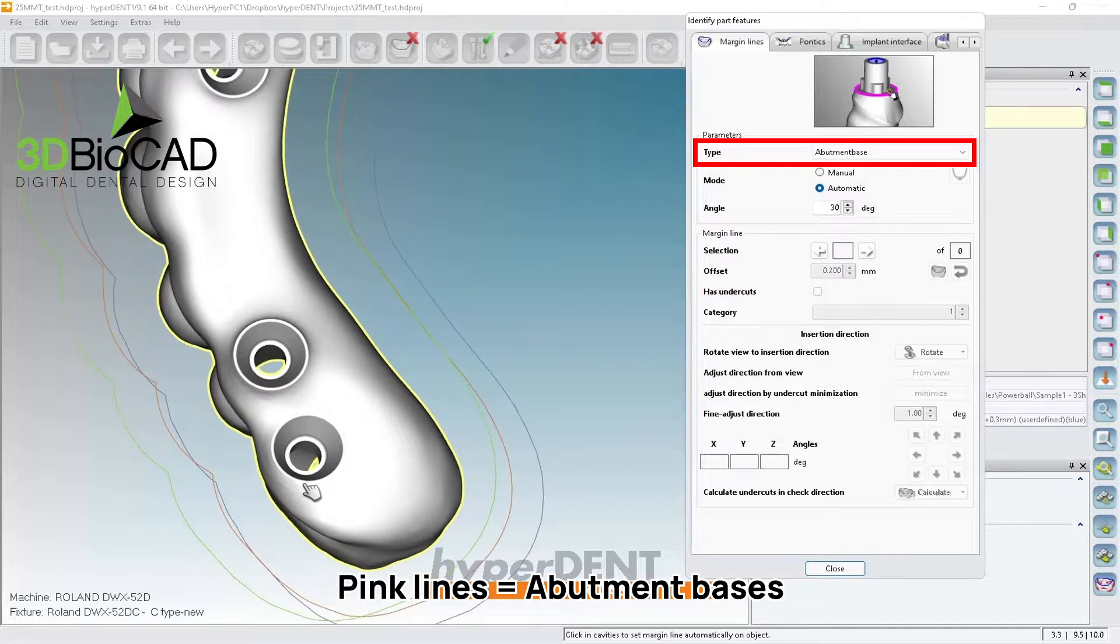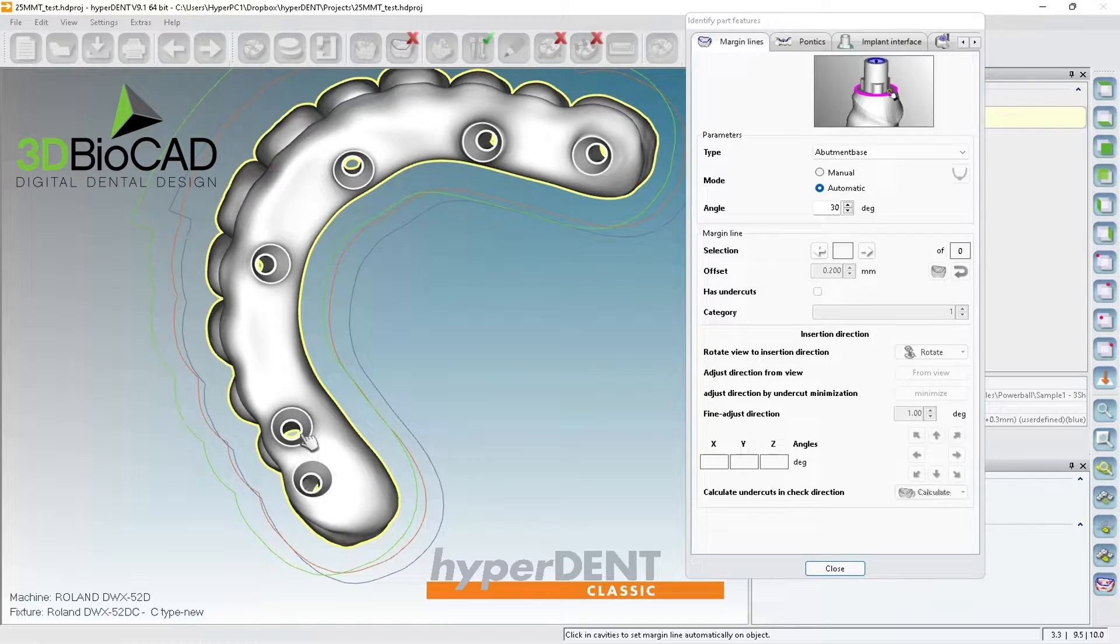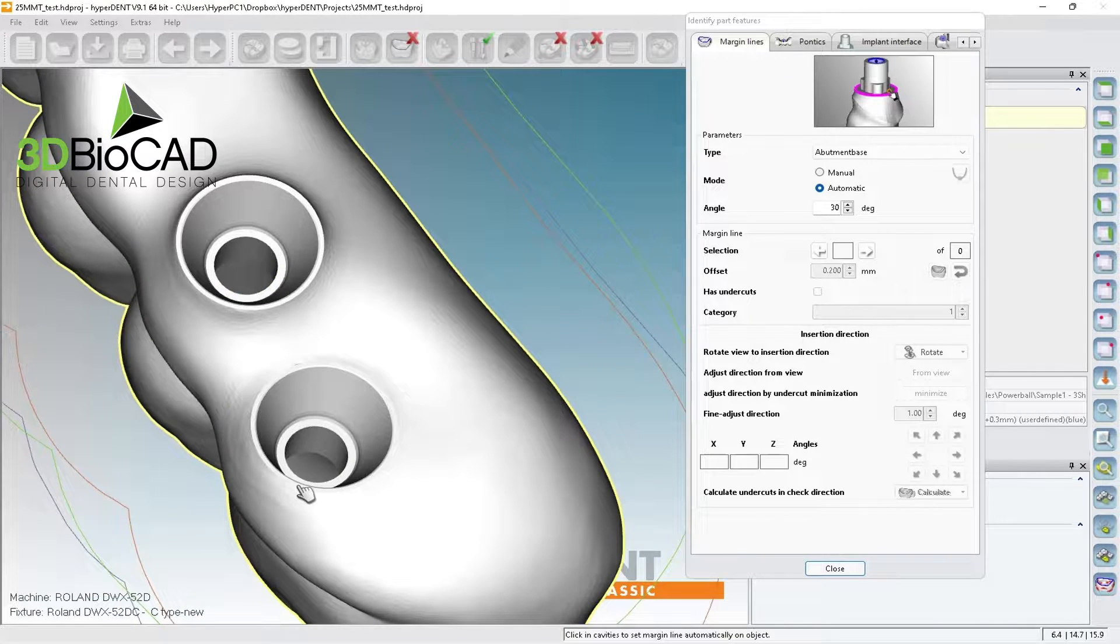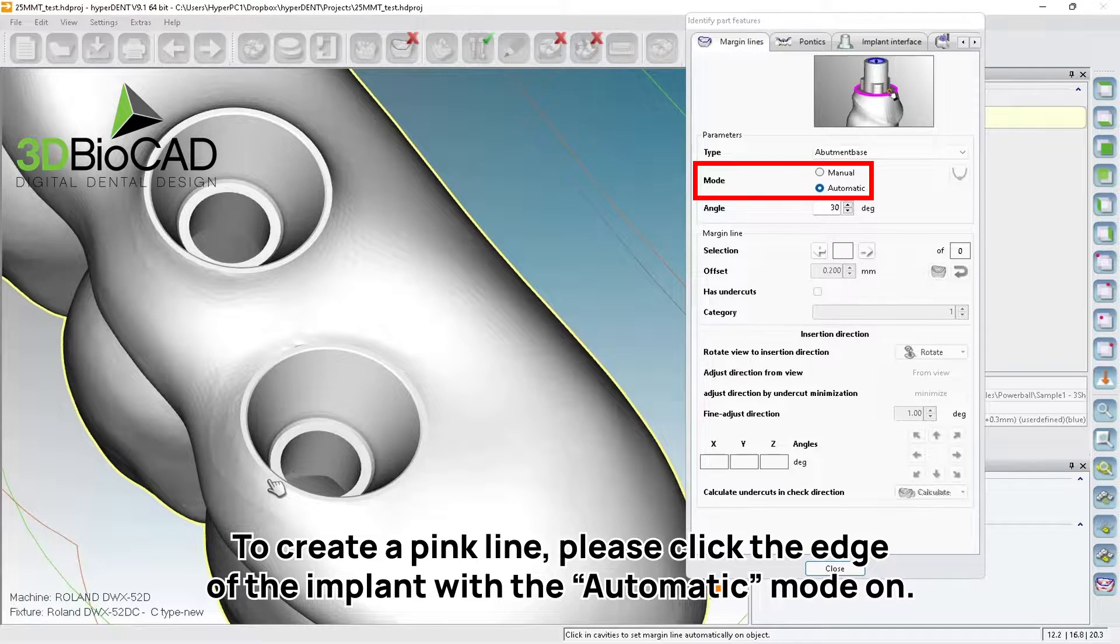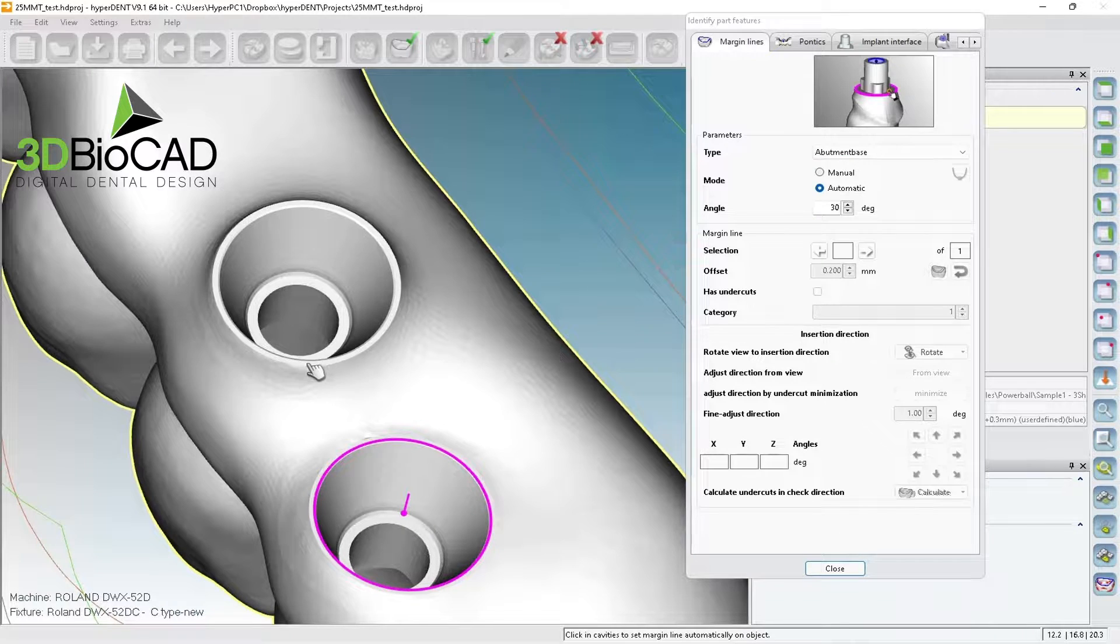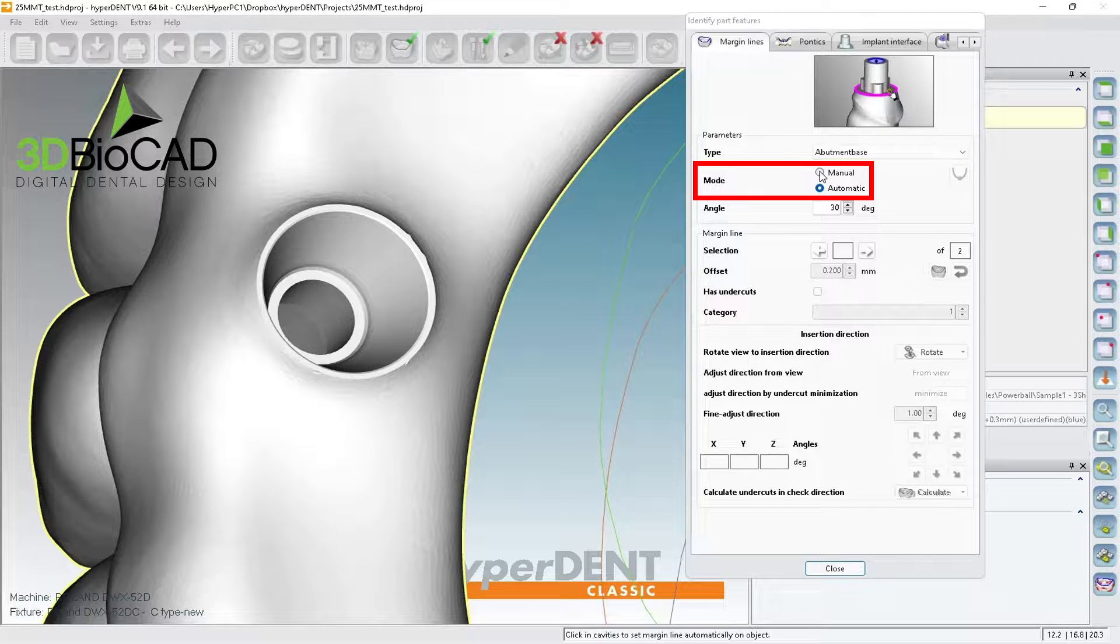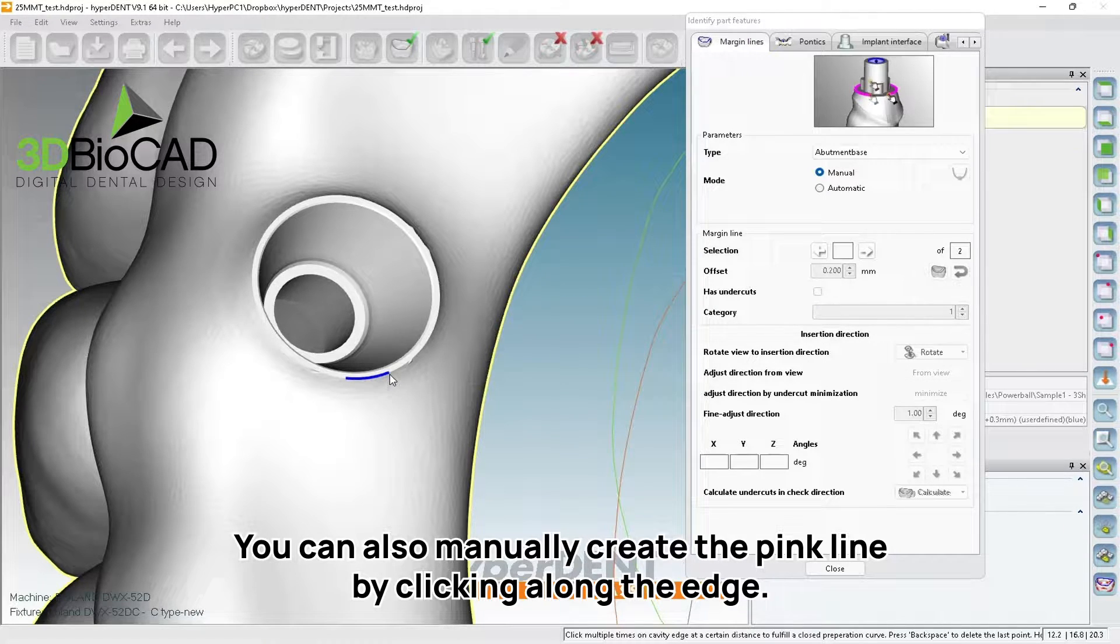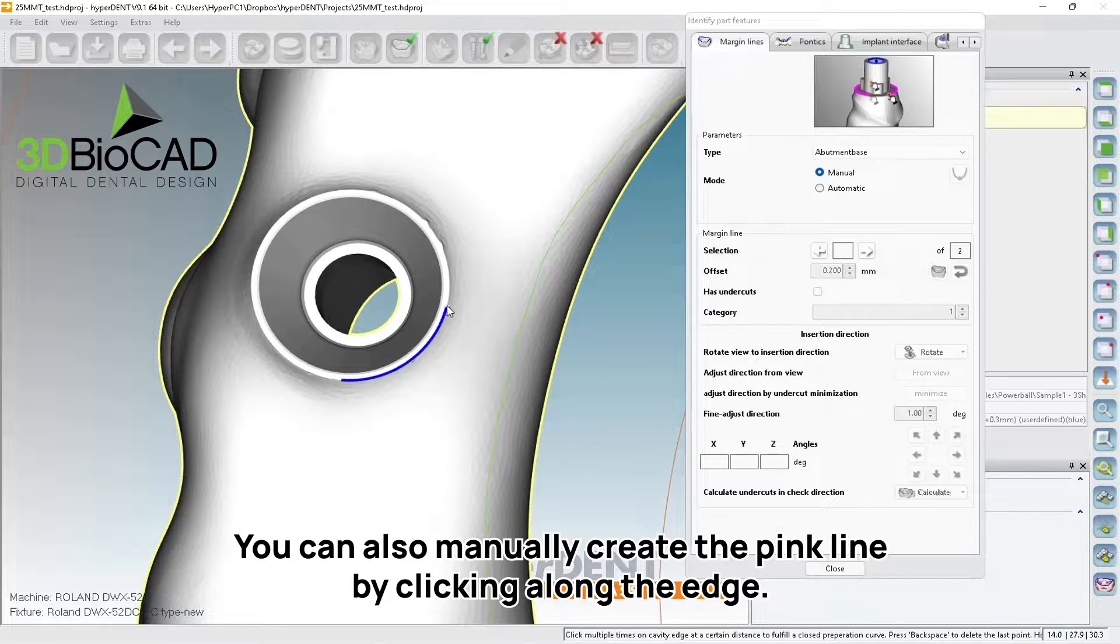So let's go ahead. Looking at this, there are one, two, three, four, five, six implants. So I'm going to select six pink lines. So automatic and you can just click the edge of it. I want to show you how to generate manually too. Click on the menu and click from the edge of it, single click. And then you can keep going. So just go a little bit, click, a little bit, click, a little bit more, click.